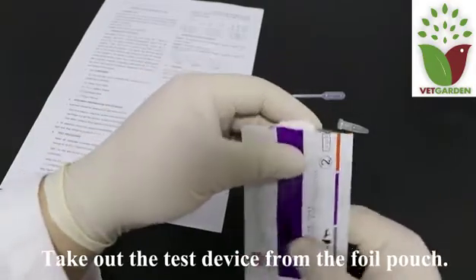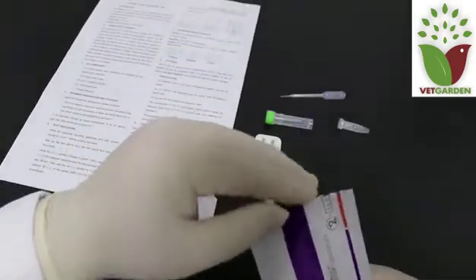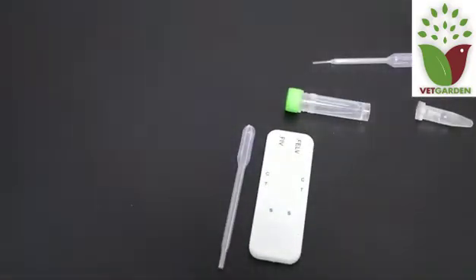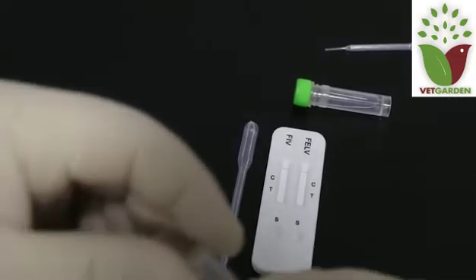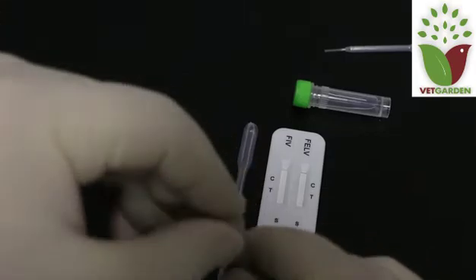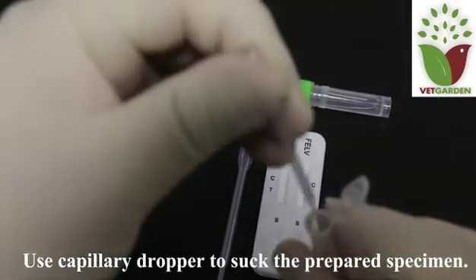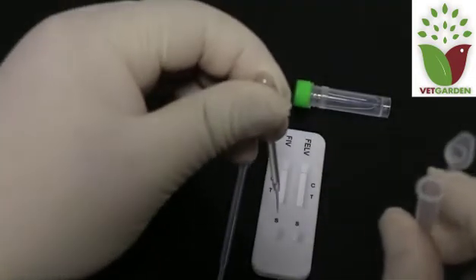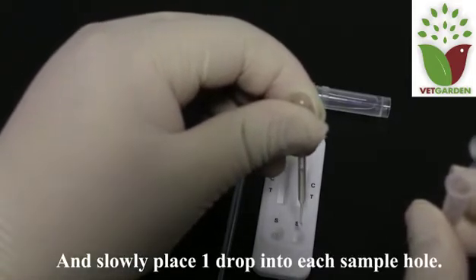Take out the test device from the foil pouch. Use a capillary dropper to suck the prepared specimen and slowly place one drop into each sample hole.